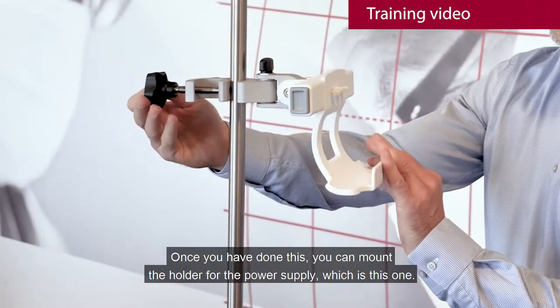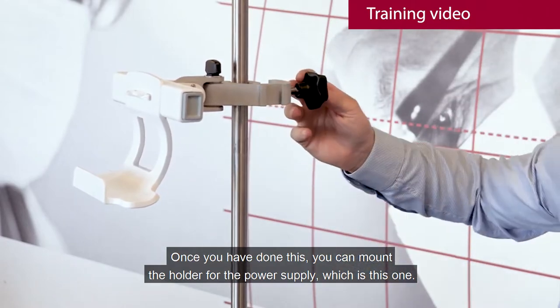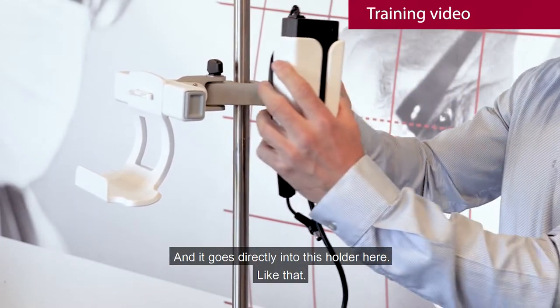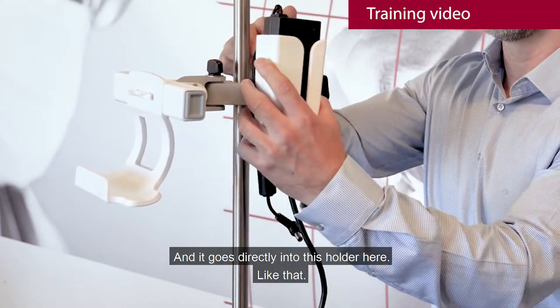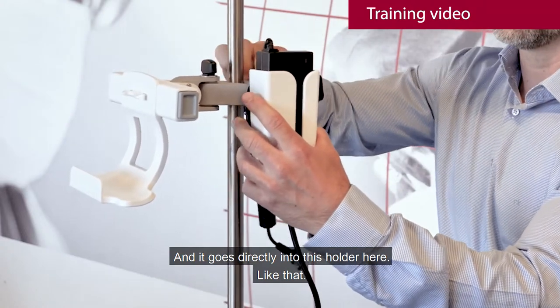Once you've done this, you can mount the holder for the power supply, which is this one, and it goes directly into this holder like that.